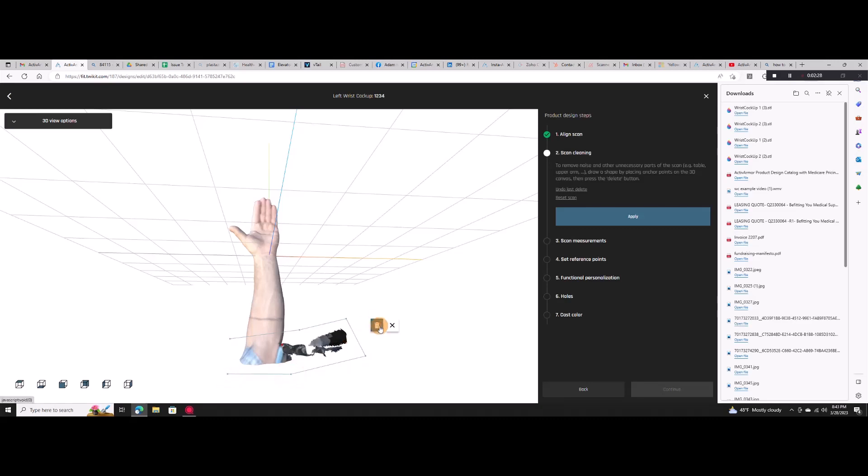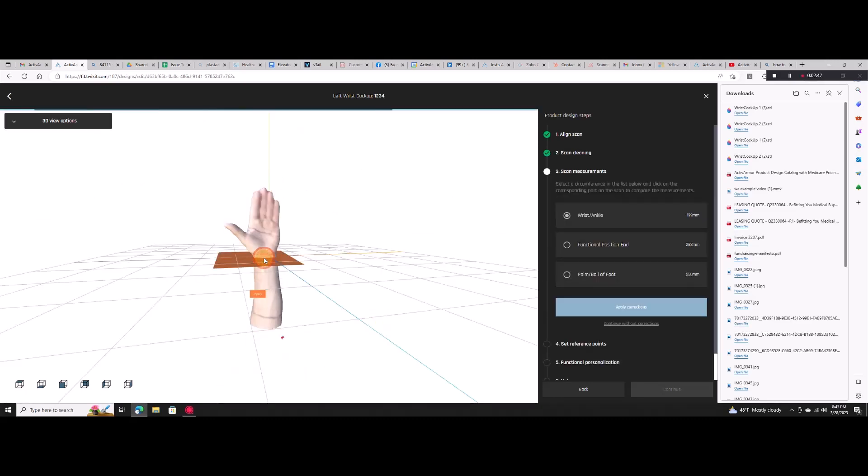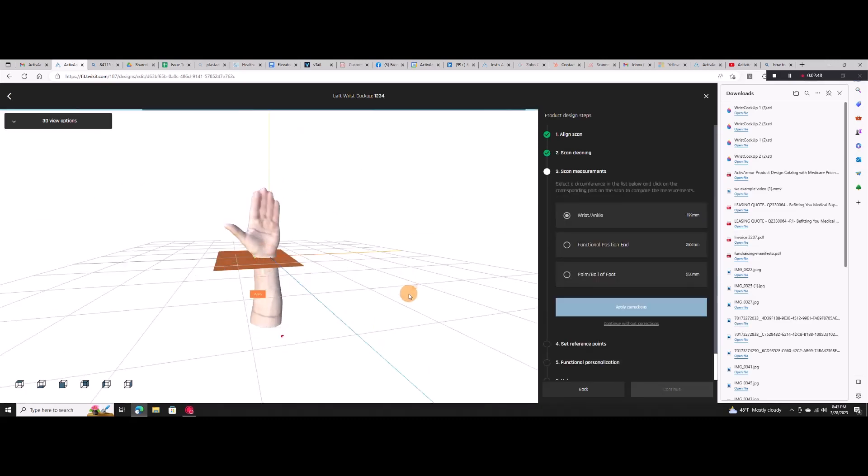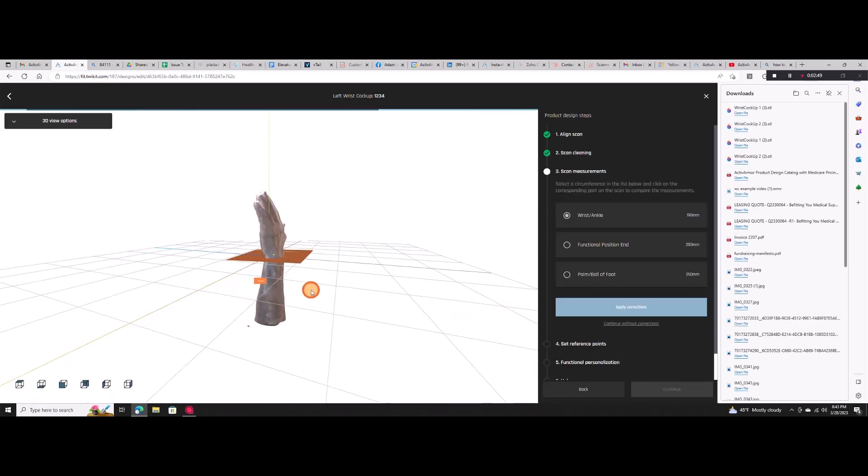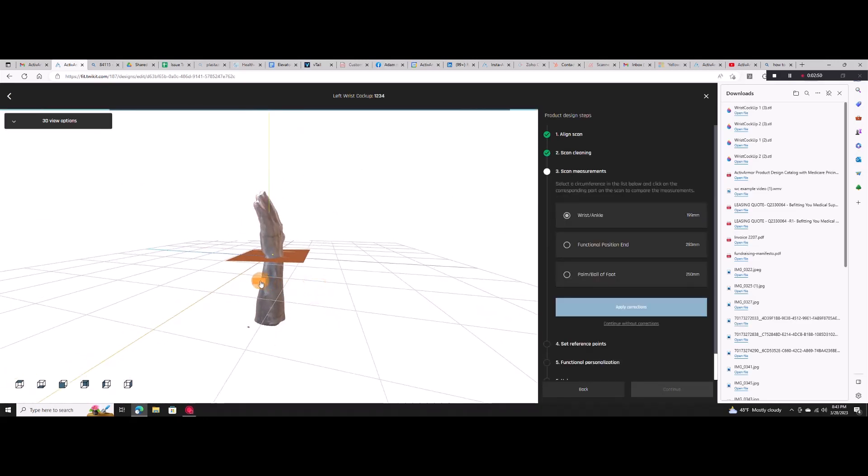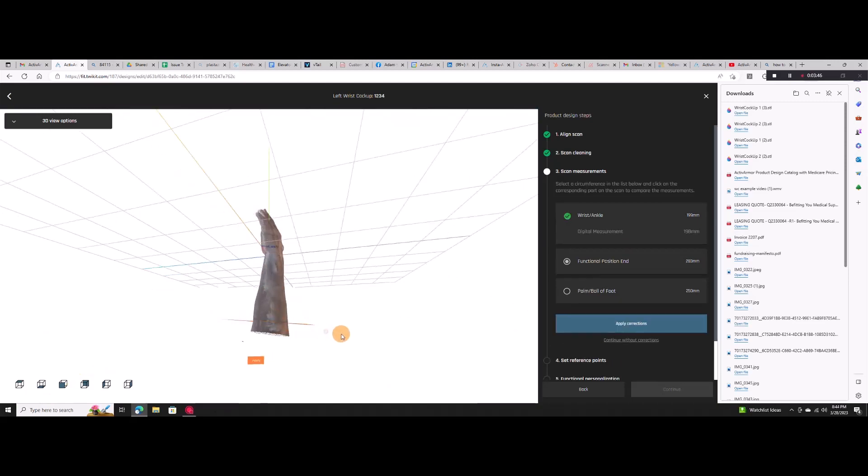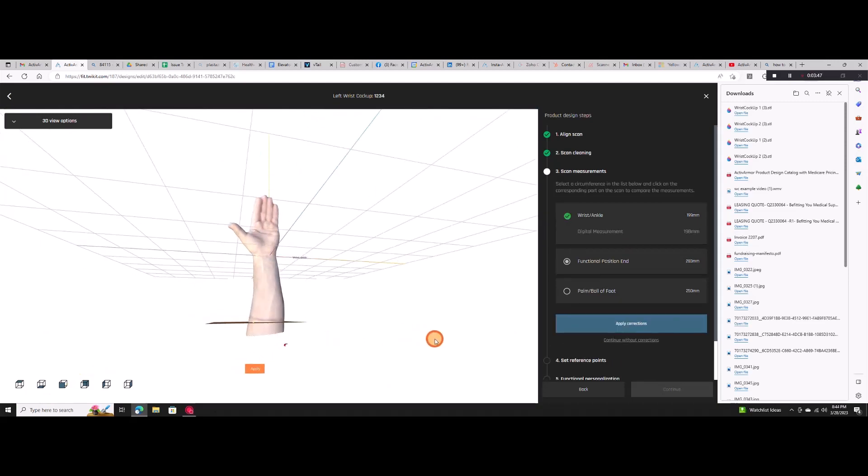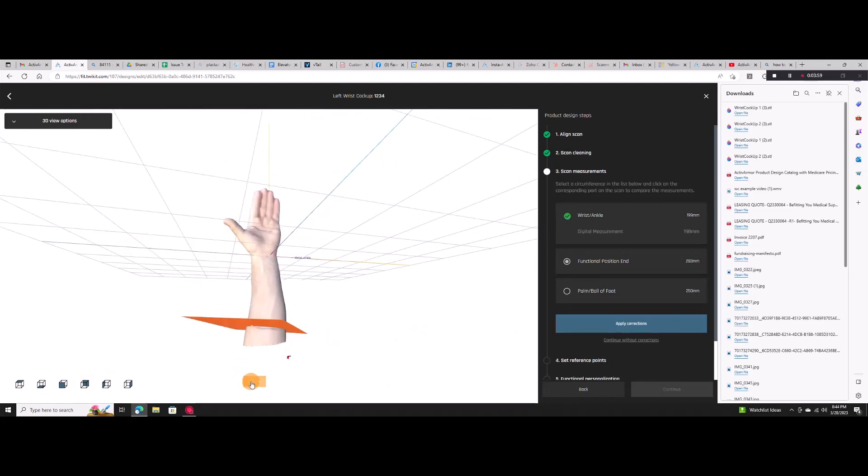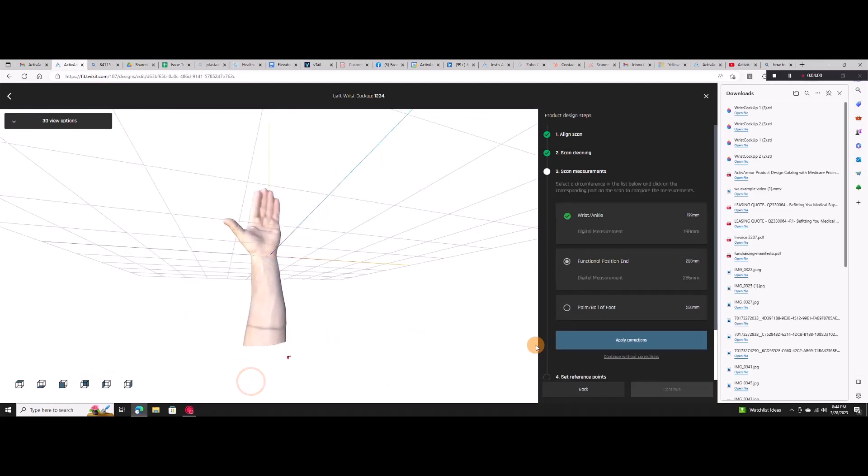To verify scan accuracy and fit at key touch points, place the planes where you took manual measurements. The scanned image will be adjusted if needed to ensure it is fitted to your specifications.